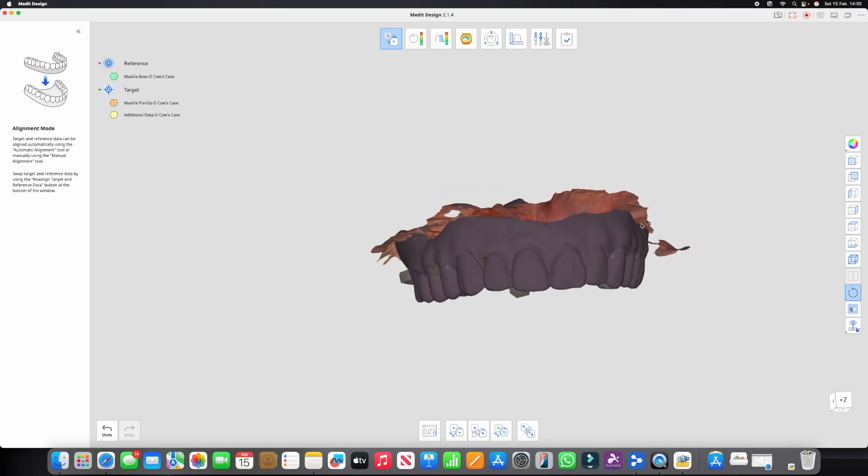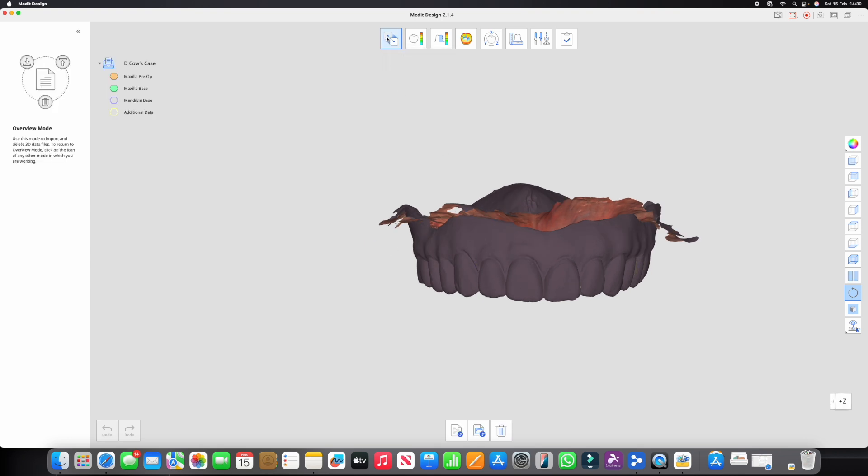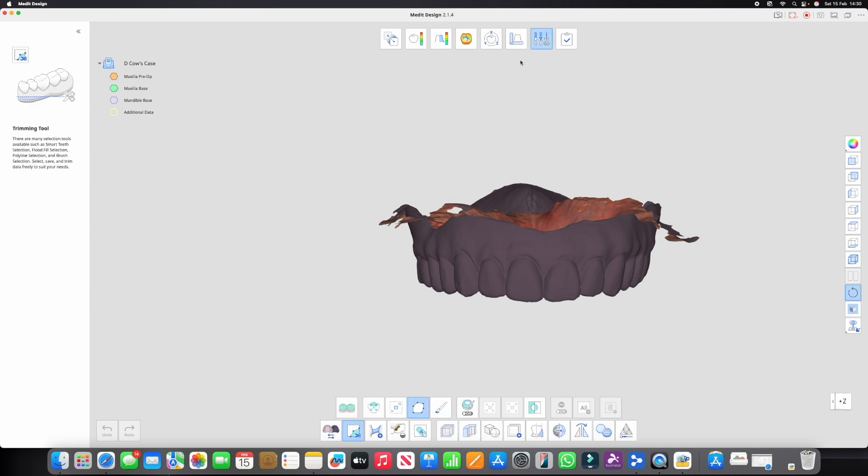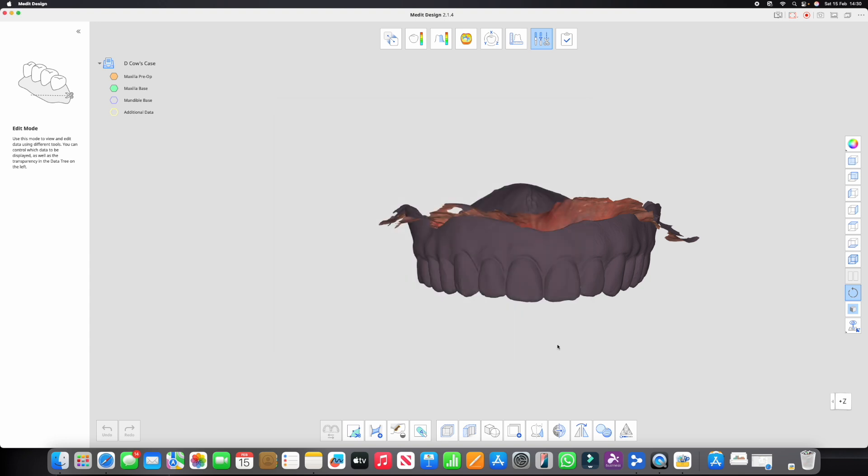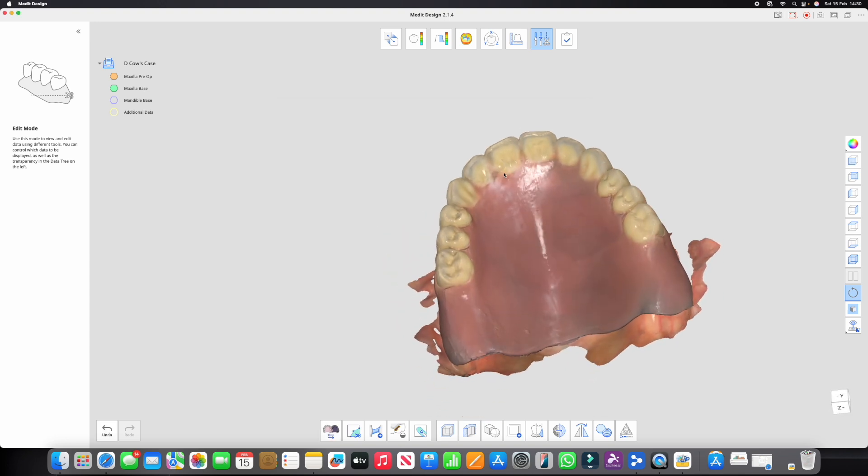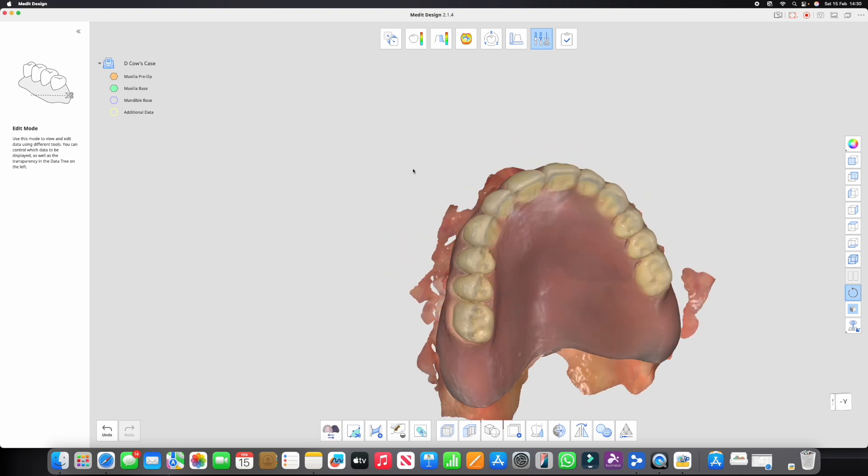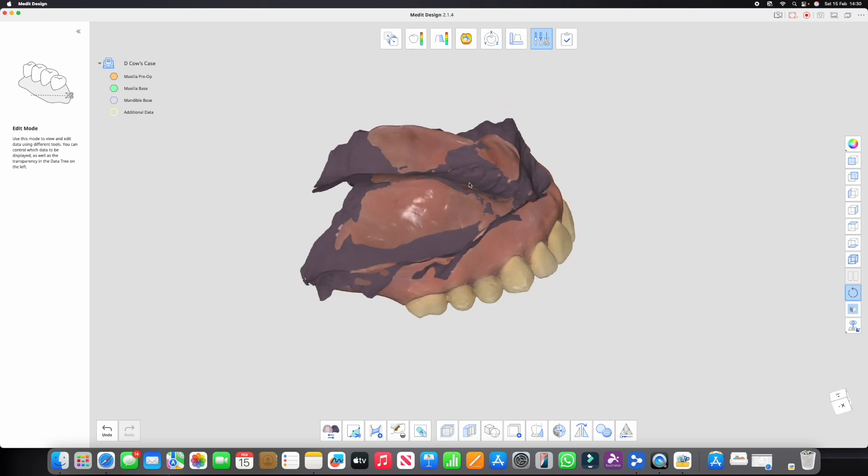Obviously we want to bring this in the right way around, so we can come out of alignment mode, we can go back to the tools and we can reverse the data again of that denture. I click confirm and there we have it. So we've got the denture in place that is now aligned perfectly with that surface data that we've scanned from the identical surface and everything is all in the correct place.